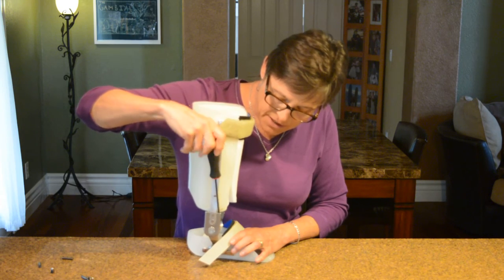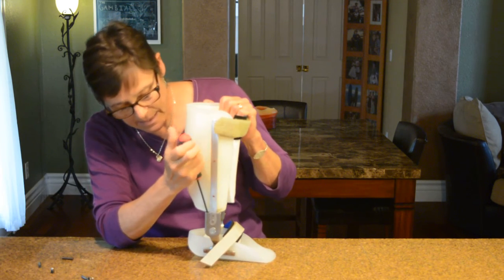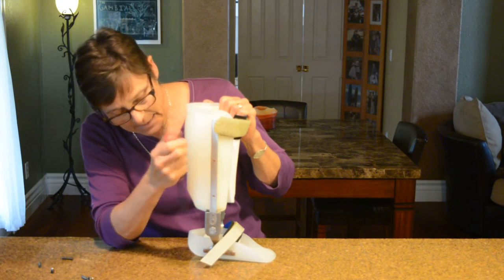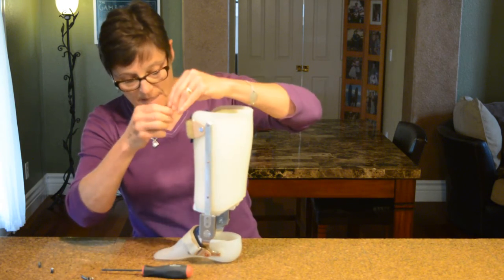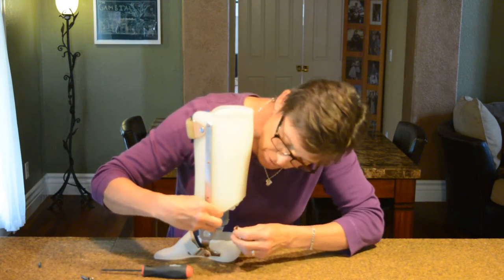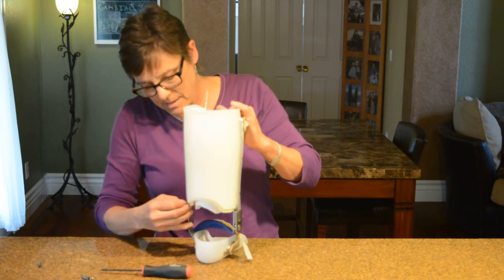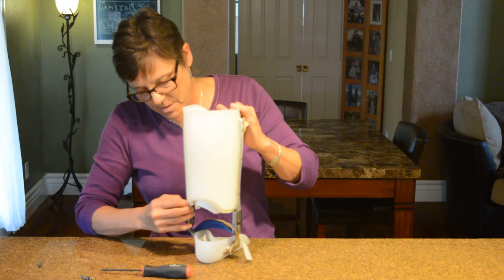Another thing you can add to one of these AFOs: instead of a pin in the posterior channel, if you remove the screw completely you can add a spring. By adding a spring into the posterior channel, you create what is referred to as a dorsiflexion assist AFO. Let me get that spring in there — it takes just a second to get it lined up correctly. These braces are only adjustable if you have the tool referred to as a ball driver, which is essentially an Allen wrench on the end of a screwdriver.